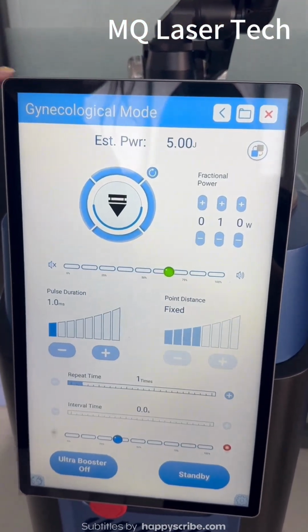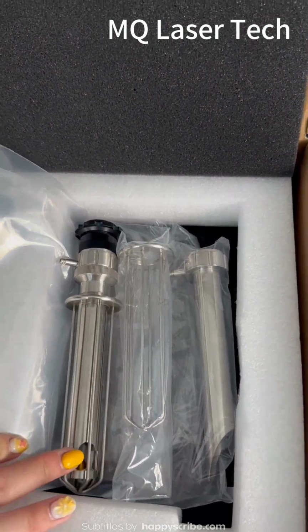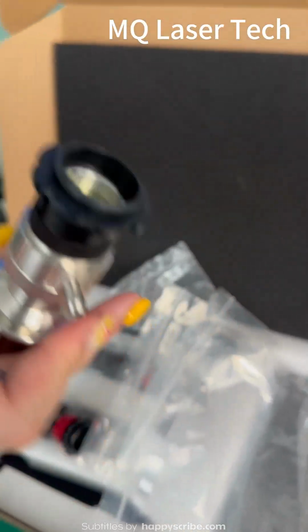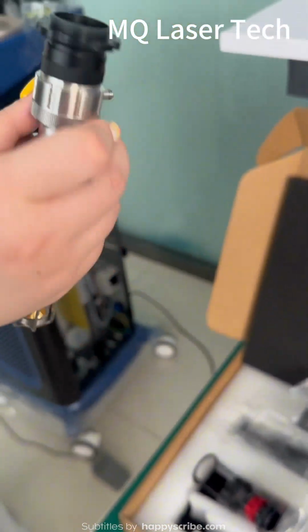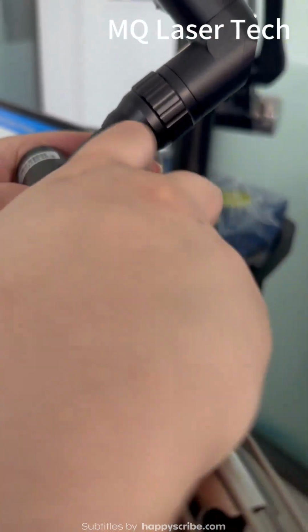The last mode is the vaginal mode. When you receive the machine, you can see the three different vaginal treatment heads. And this one is the 360 treatment head. You can install it like this.